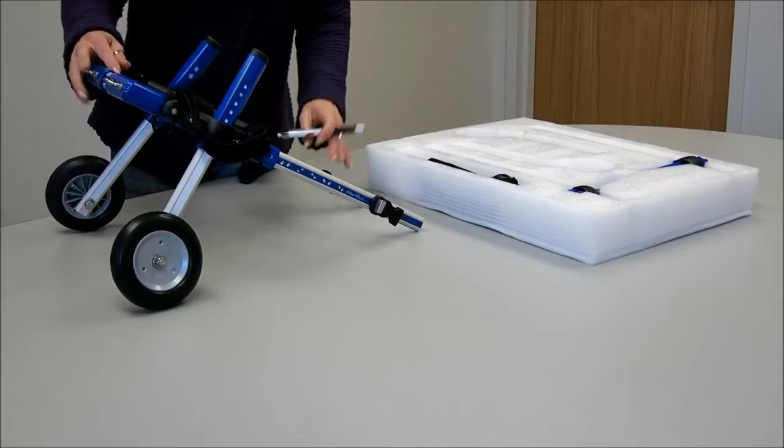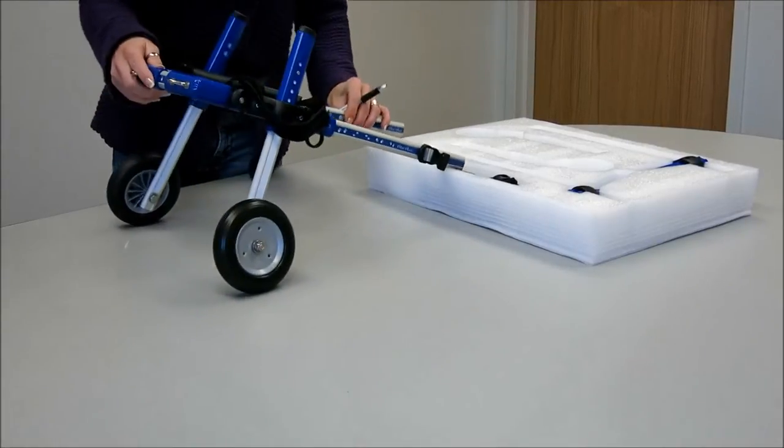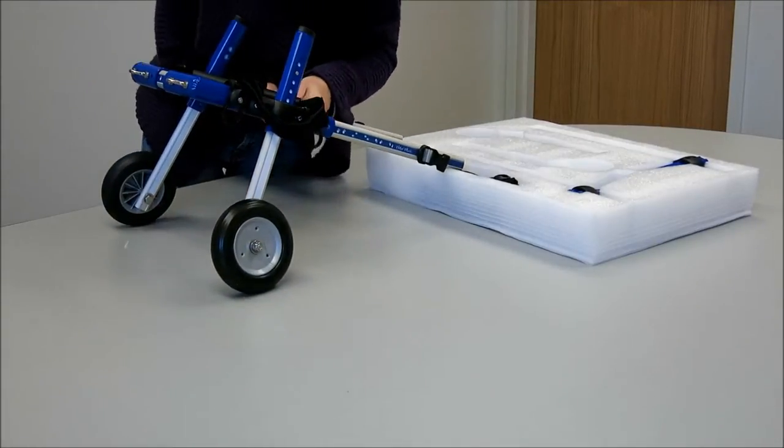First thing we are going to do is remove our side extenders. We're not going to need these anymore.